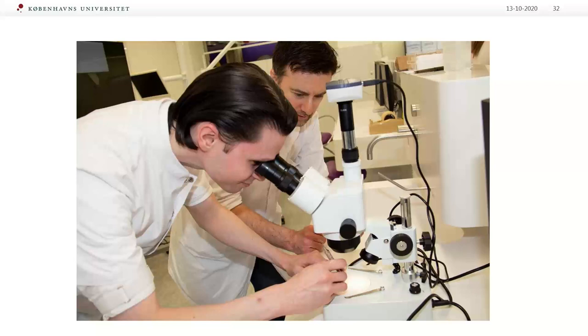You can see here in this picture — I love this picture — our students learning for the first time last year how to compare dull and new instruments using the microscope. You don't really need that large a microscope; we also have one with just 40x magnification, but loupes are just fine, I think. I would like now to thank you for your attention, and I will be very happy to answer your questions. I hope you have some at the end of the session. Thank you.